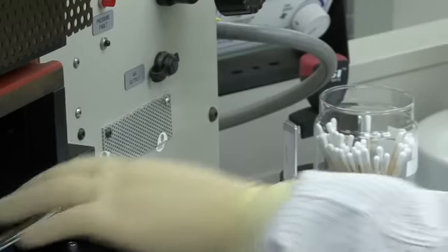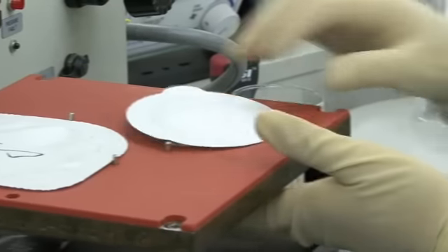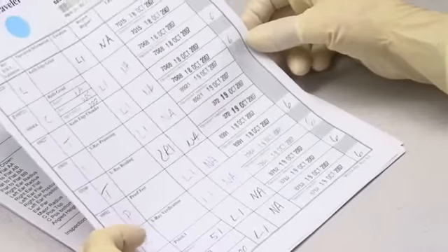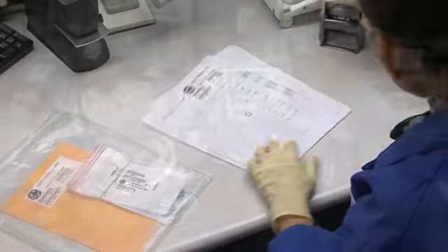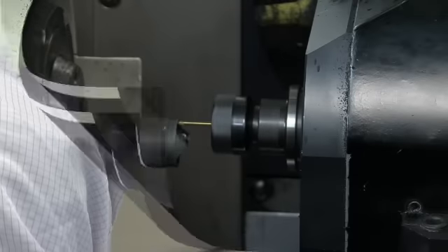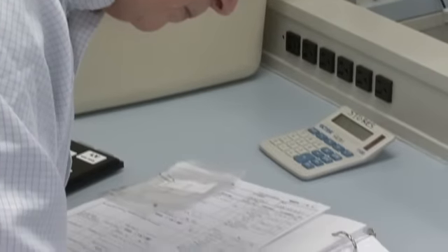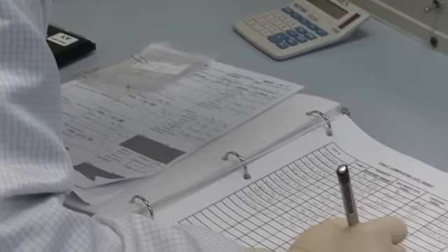Throughout the manufacturing of St. Jude Medical mechanical heart valves, none of the processes utilized is more fundamental or important than the documentation of the mechanical processes, their operators, and specific materials used. Monitored with detail and precision, these records are retained for 100 years.